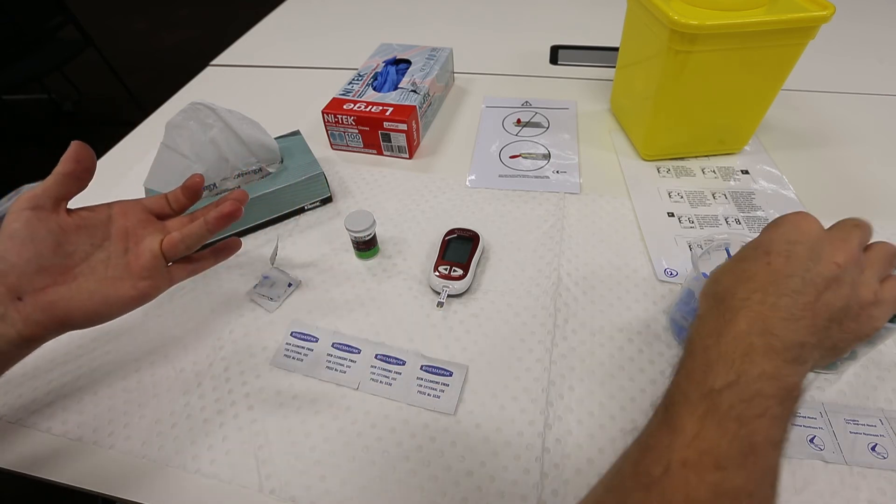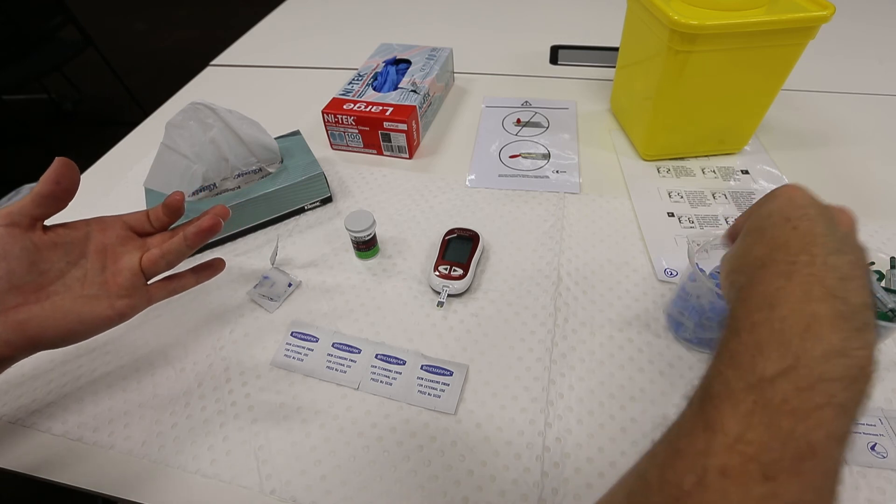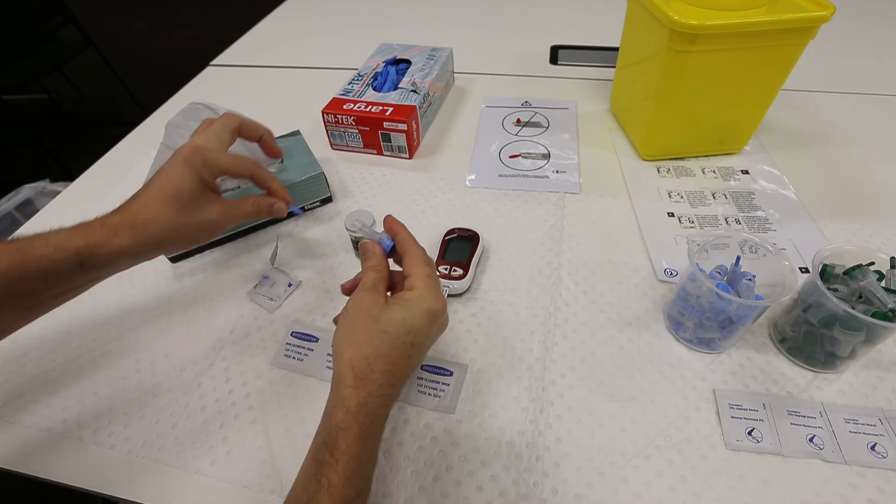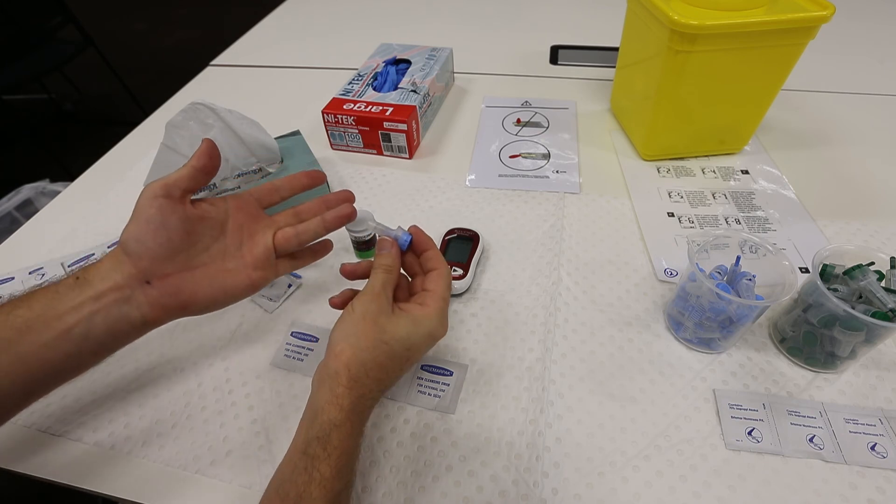Next, take one of the lancets and pull the plug from the end. Then, gently holding the lancet against your skin, press the button.